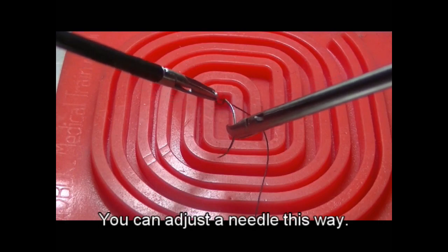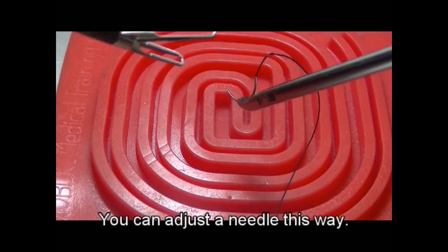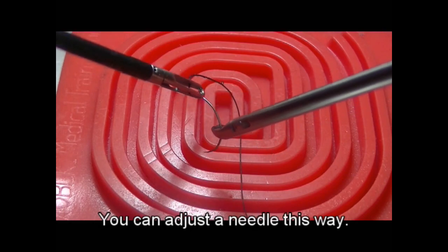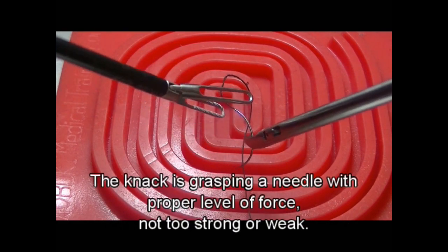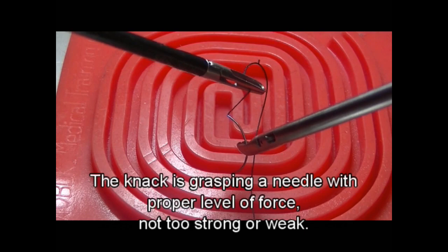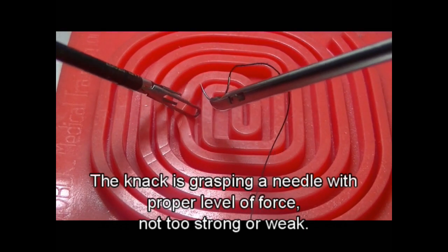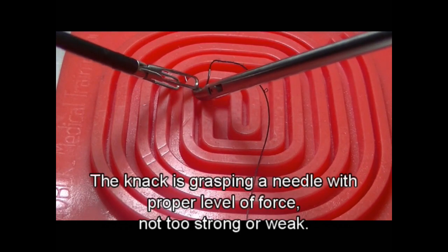This is usual dancing needle, but you can adjust the needle this way. The knack is, as I told before, grasping the needle with the proper level of force, not too strong or not too weak.